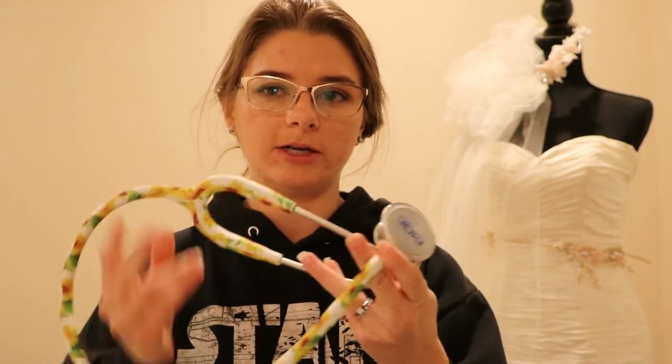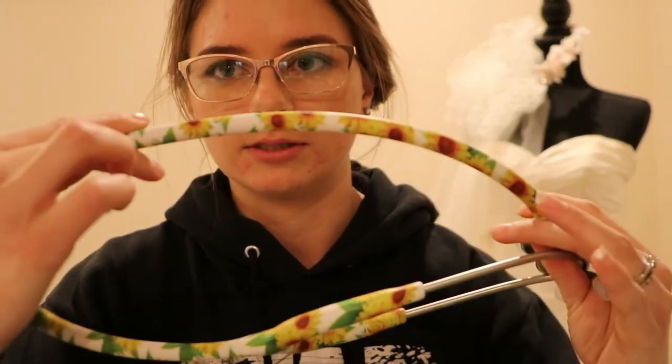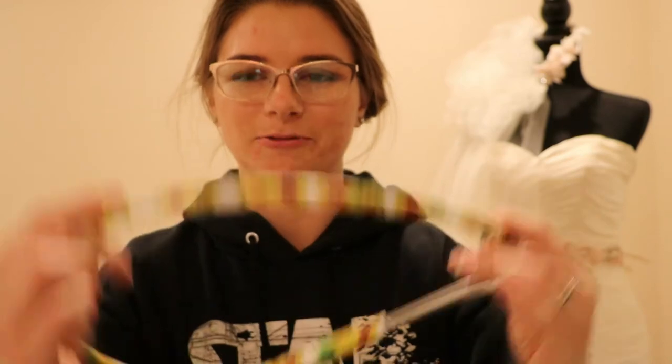I got the MDF — I think it's the MDF 777 — and it's got the pretty sunflower pattern on it. I love it, I got tons of compliments, but I always kind of wondered about how the sound quality was versus a Littman.